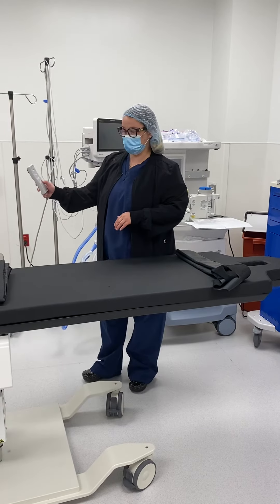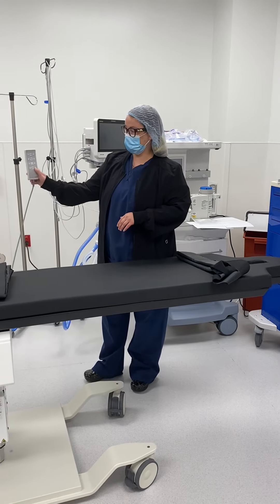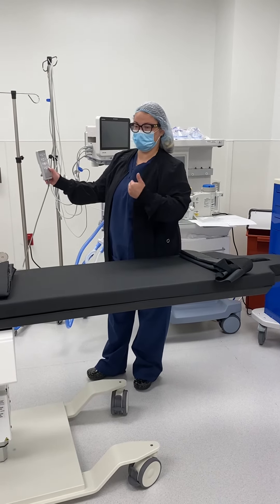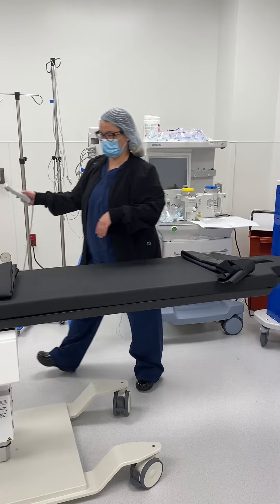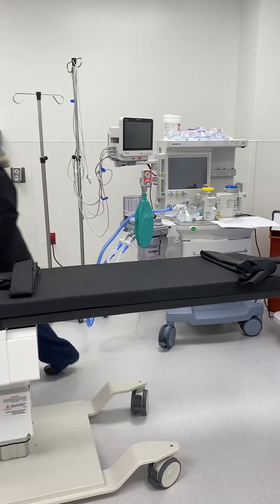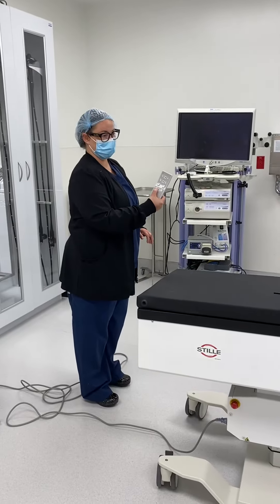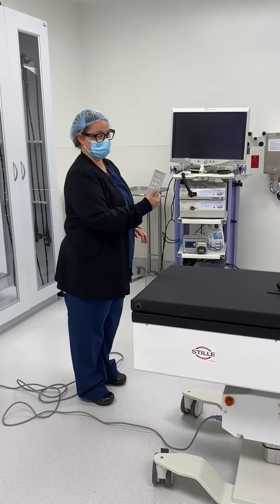So to tilt right, you have to stand at this area. If you're going to be at the foot of the bed, just always be mindful that it's opposite.